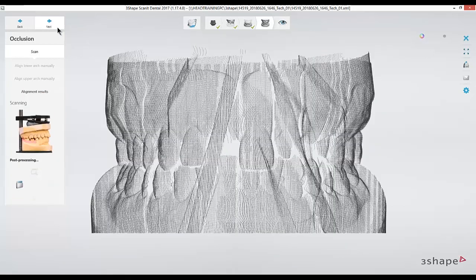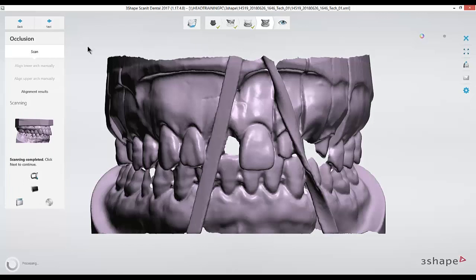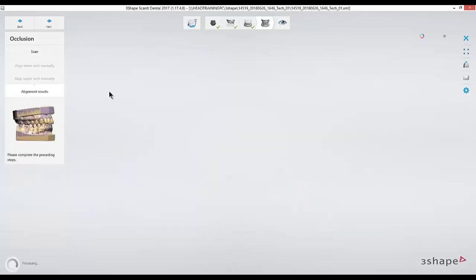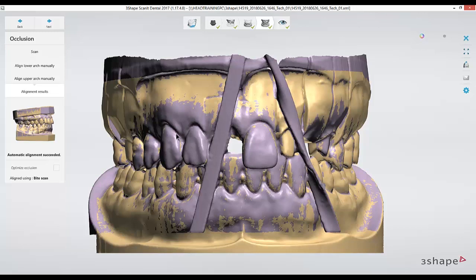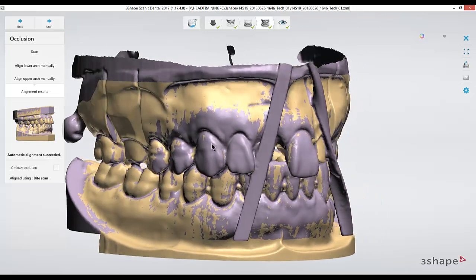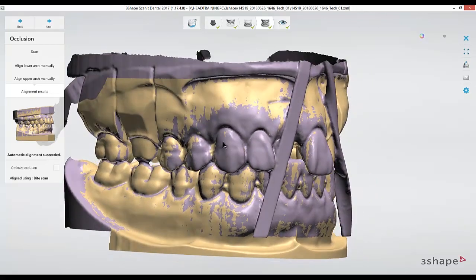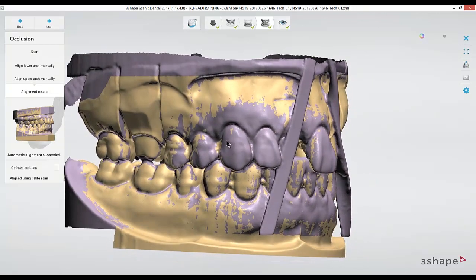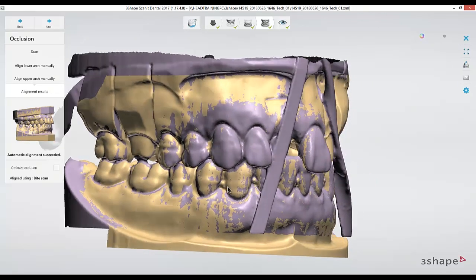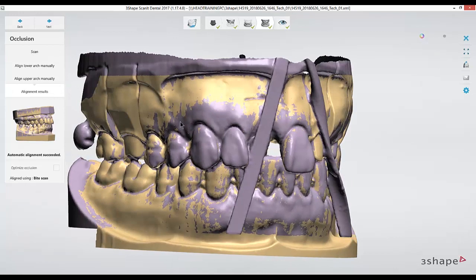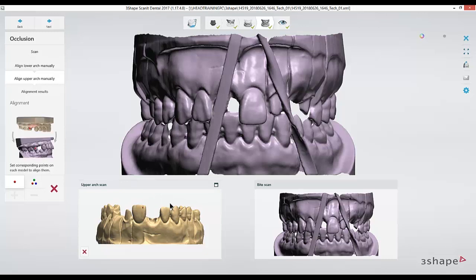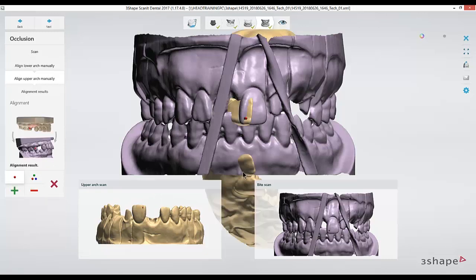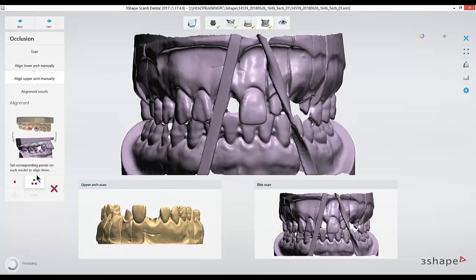Then we'll put both our models together, usually holding a rubber band to keep them in occlusion, and then scan that and use points to line them up. As long as you see these speckled surfaces, you know that the alignment is correct. If it wasn't lined up, you're able to click the align manually button and use one or three points again in a triangular manner to get a good realignment.